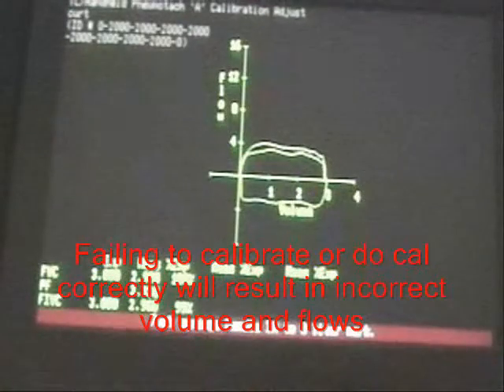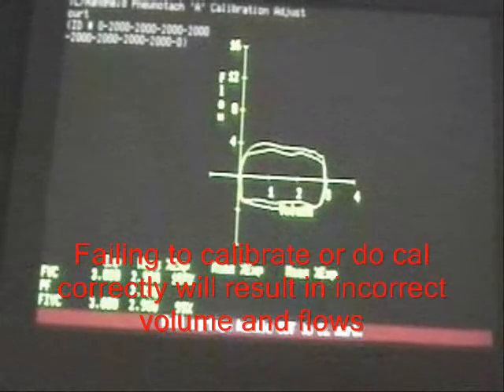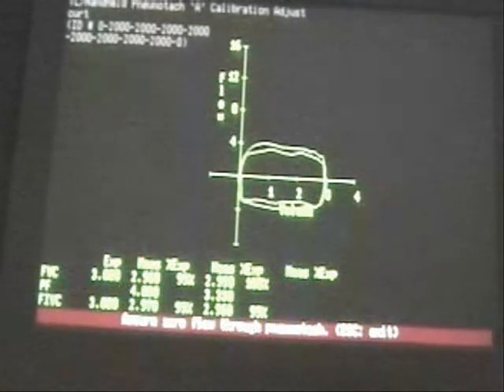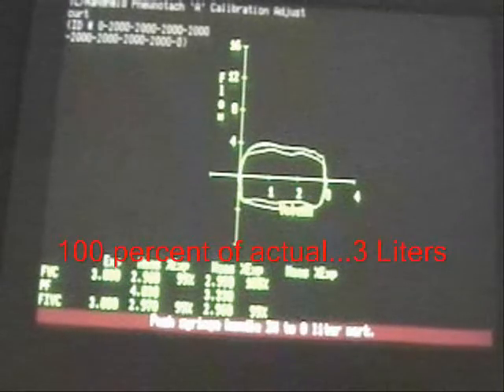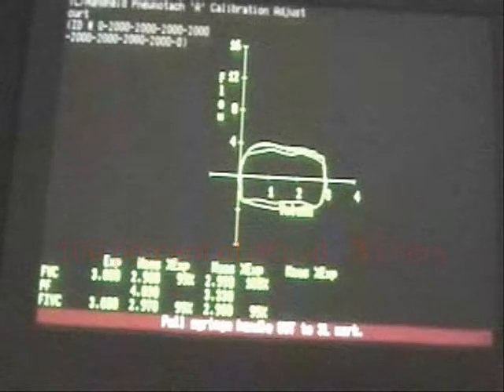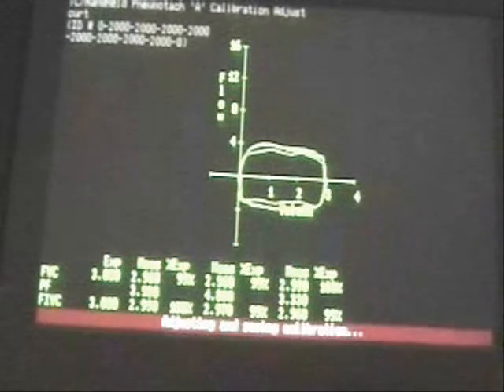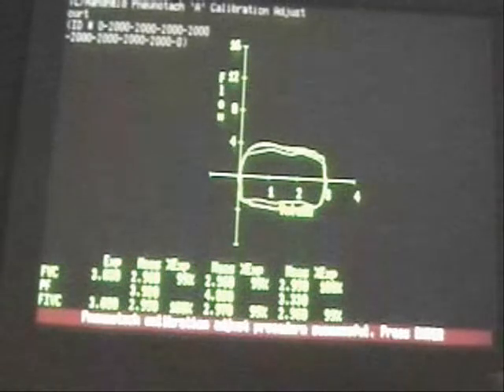Push in, pull out. Notice it's measuring approximately 100, 99 was first, second was 100%. Push in, pull out, and all of them came out with acceptable, and the procedure was acceptable.